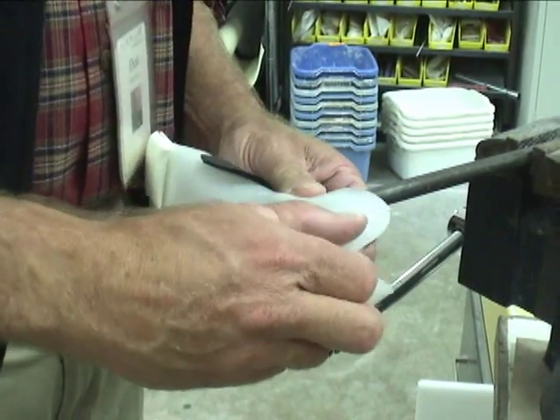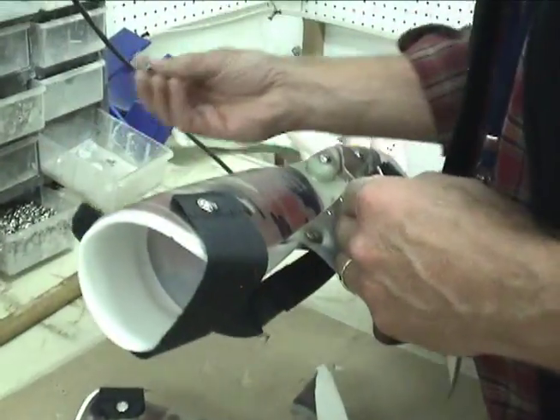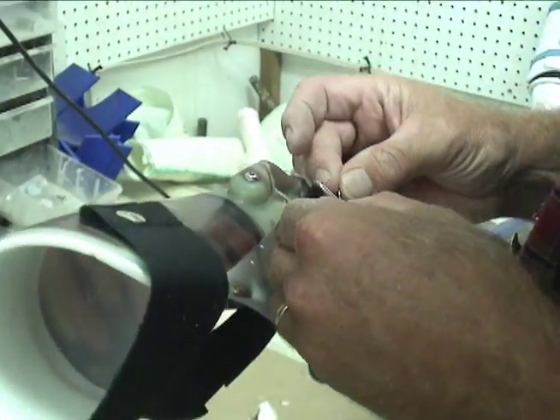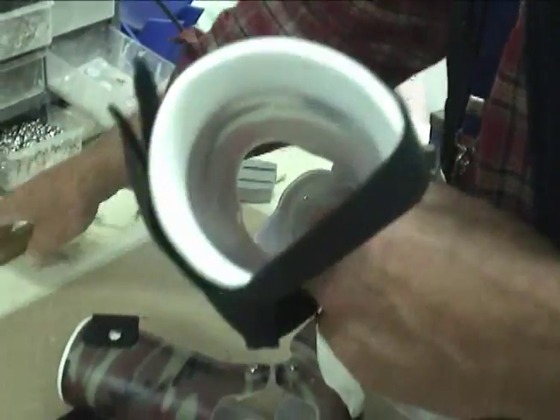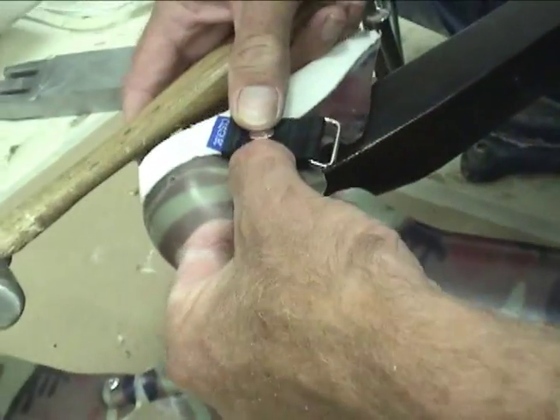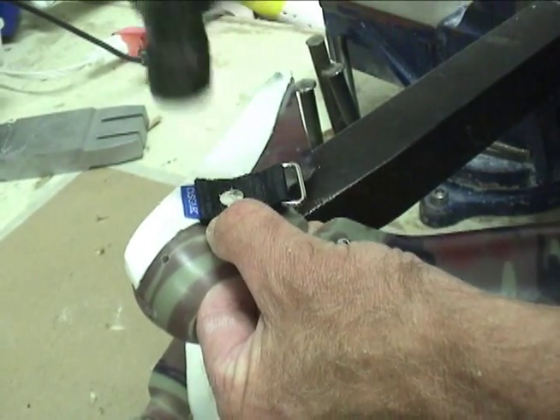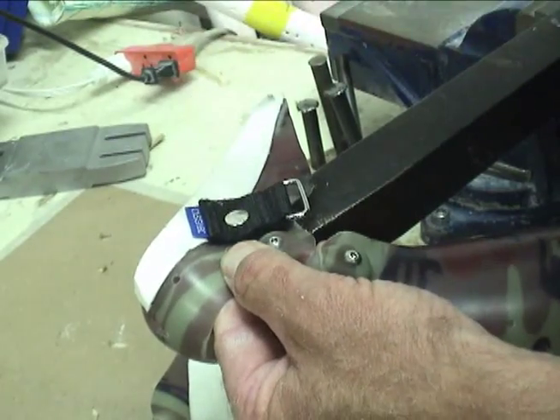My goal is to have the relief be adequate but fairly specific. I have to reapply the strap. In this video, I'm using the riveting bar that's in our orthotics lab. Out in the clinic, I actually carry a steel trailer hitch, which I can hold inside the brace as a riveting bar.